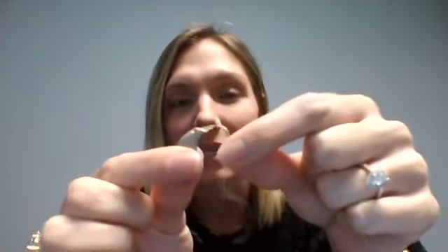So I'm going to take this little guy right here. This hearing aid is called a RIC, or a receiver in the canal. So here on the back you have the microphones. This little thin wire leads down to your receiver — sometimes we call it a speaker. Inside the body of the hearing aid you have your amplifier or your processor. On the end of that receiver you have a little rubber dome, and then here — I call it the tail — this is just a retention strand.